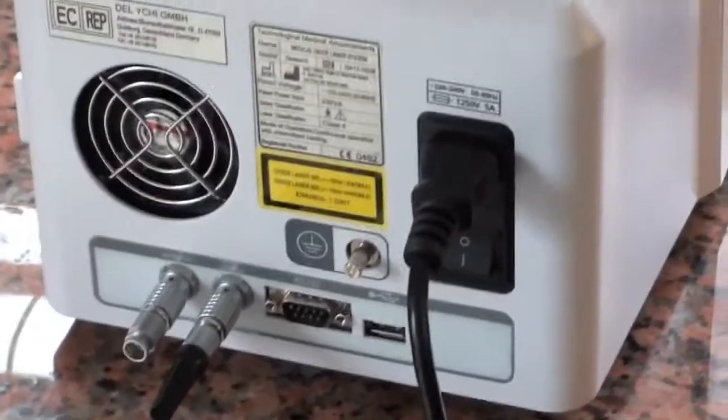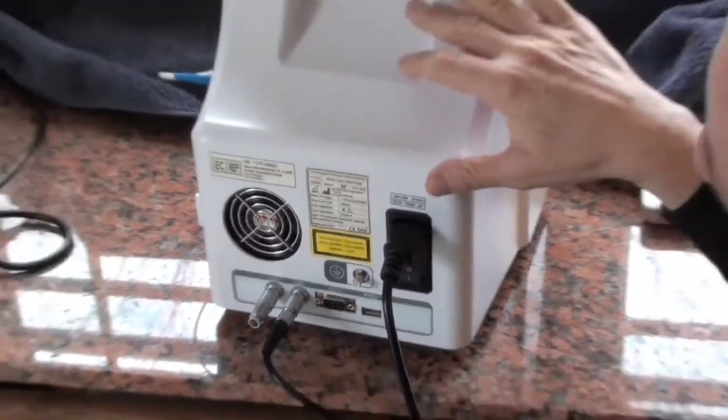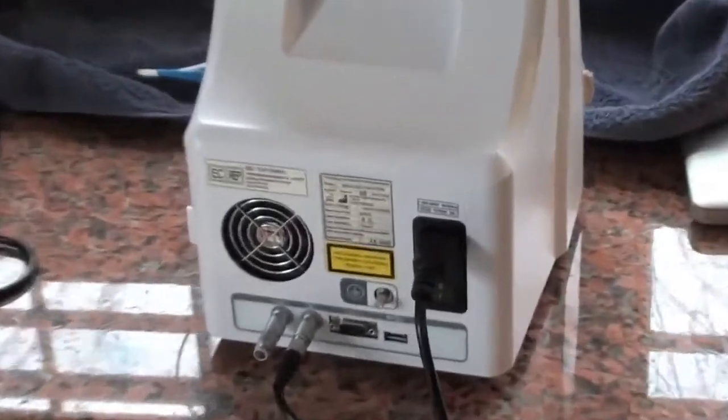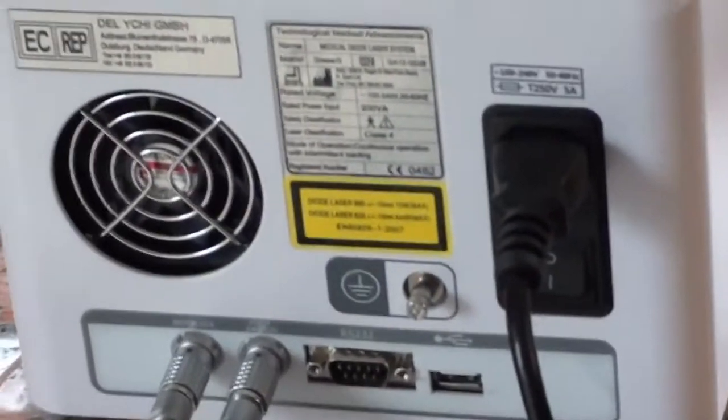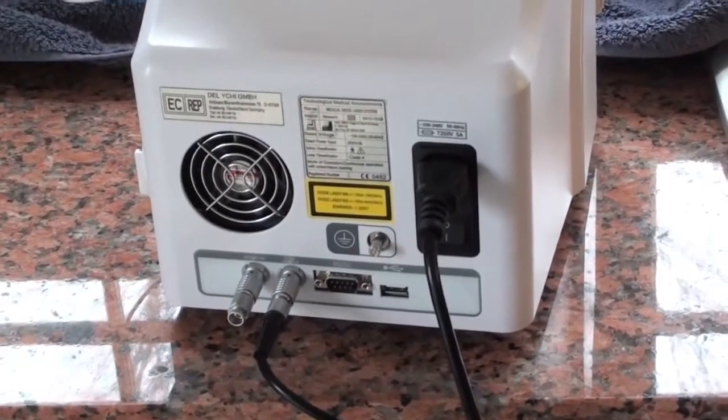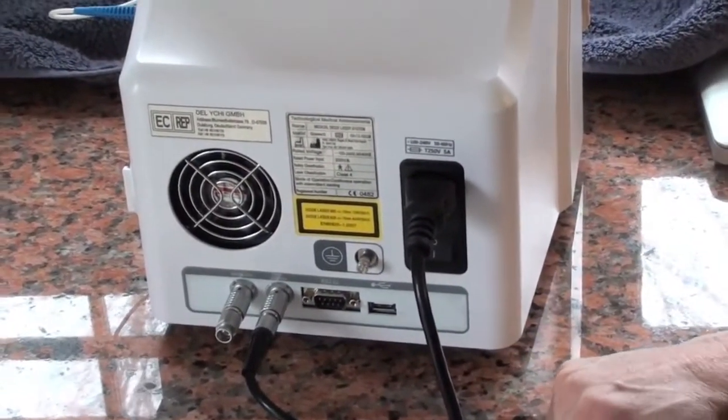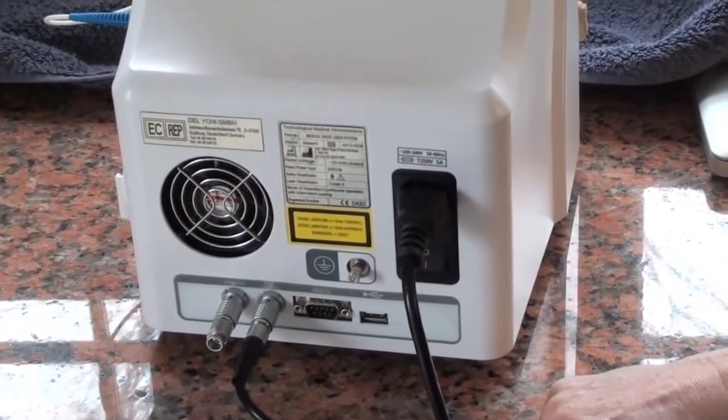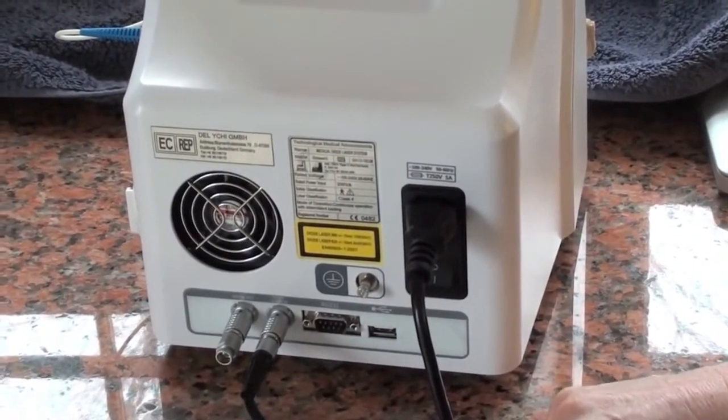Okay, hi. This is Dr. Zuckerman. In front of us we have the back of the DiaWave 15 high energy laser. It comes in two models, a 10 watt and a 15 watt. Today we're going to show you how to set it up, how to program it, go over all the internal features, and show you some precautions in using the laser.